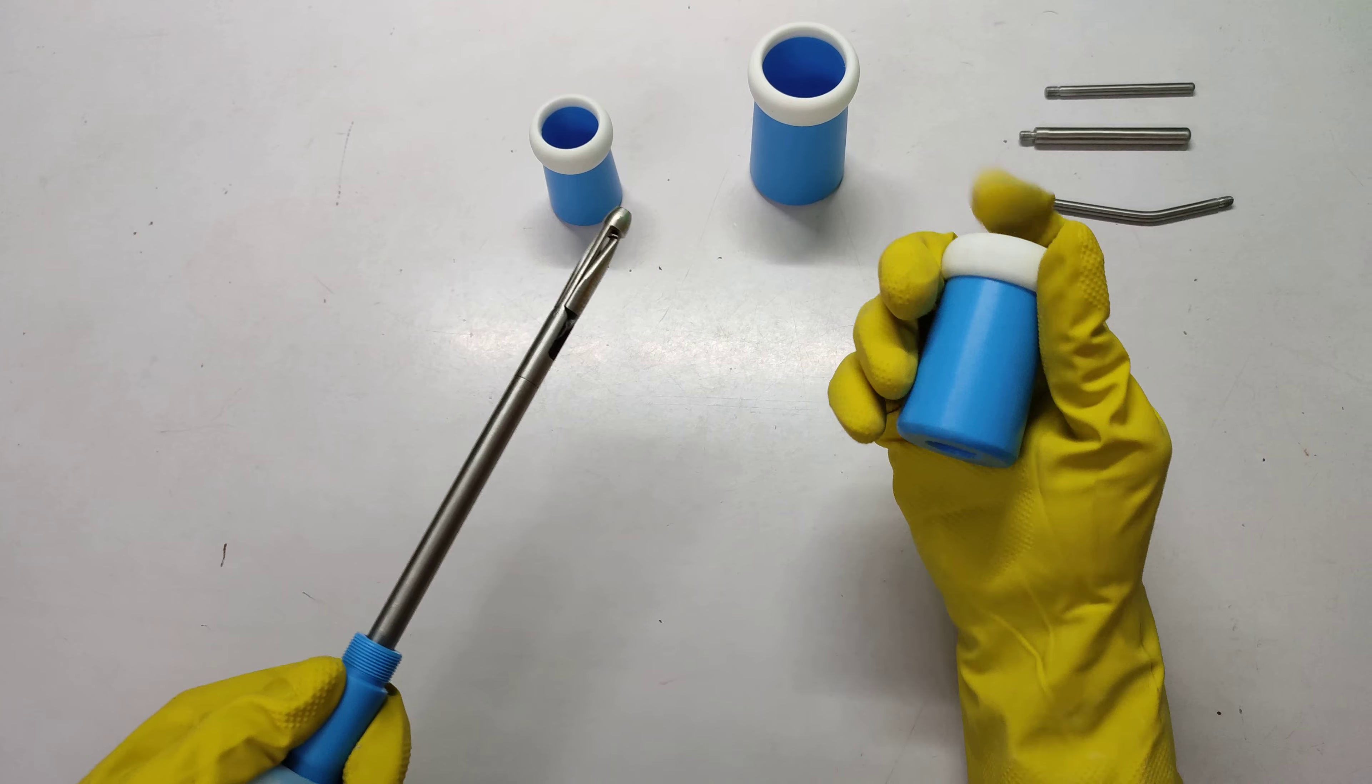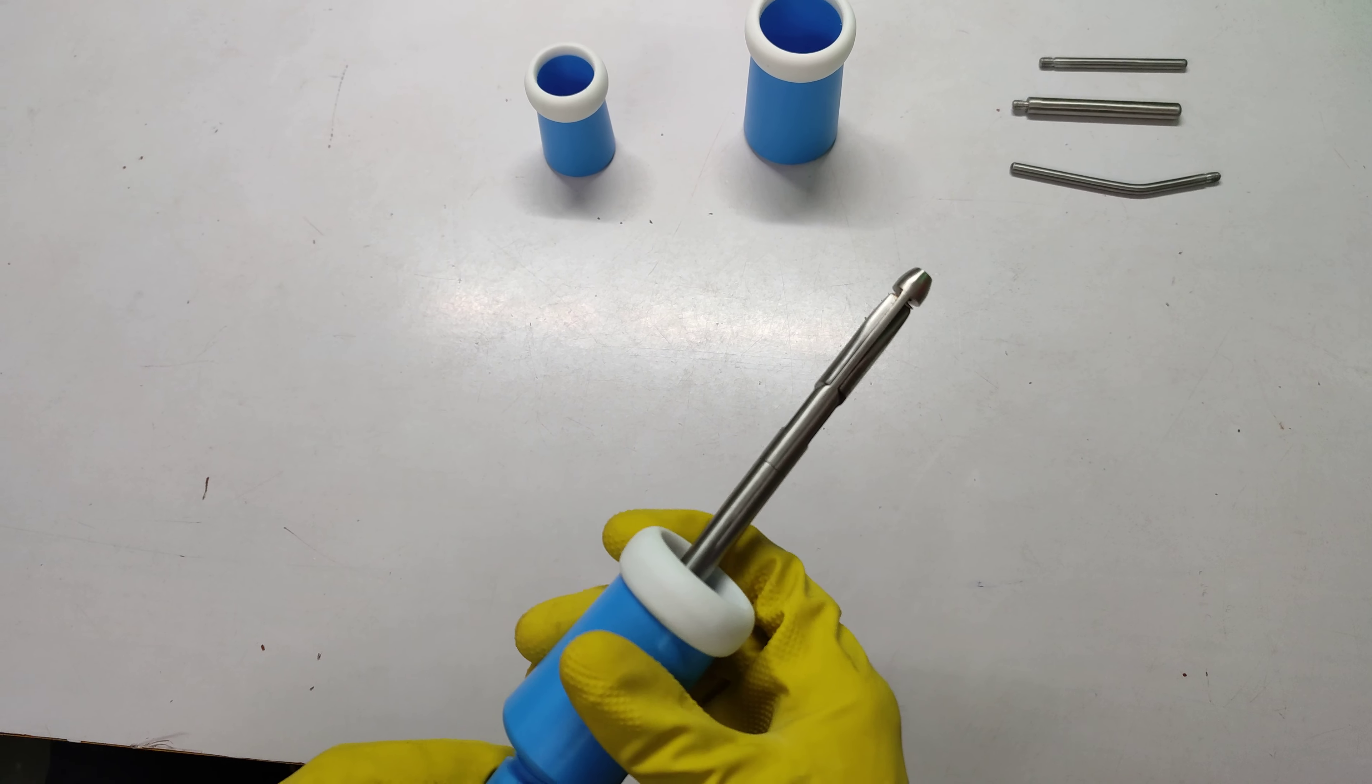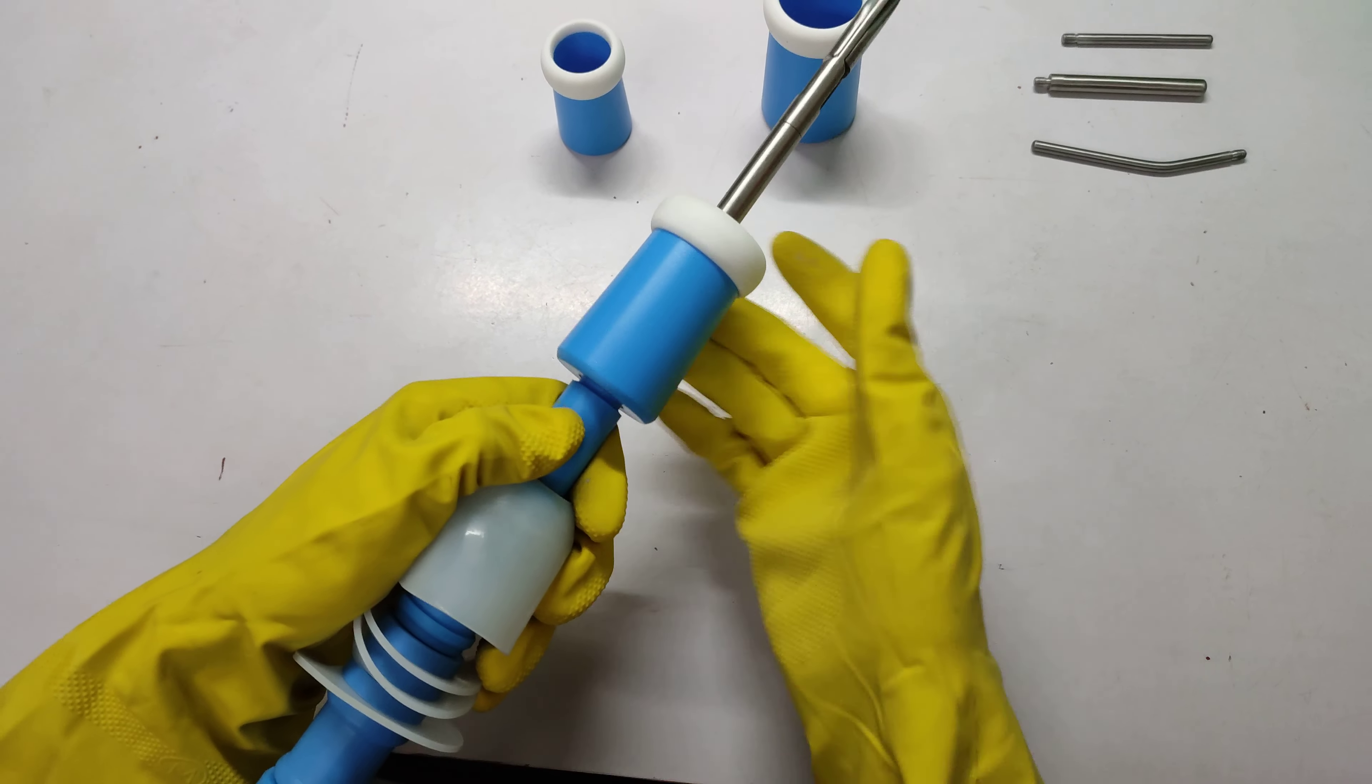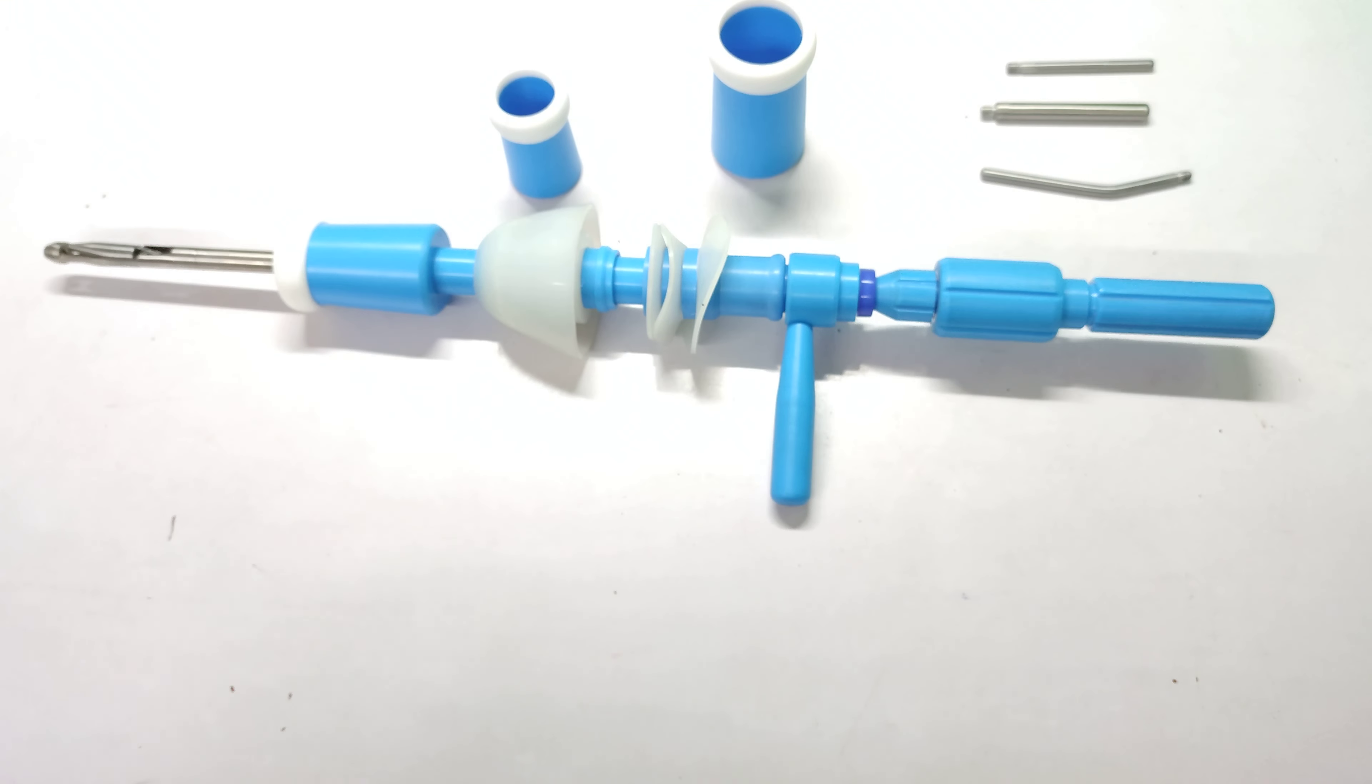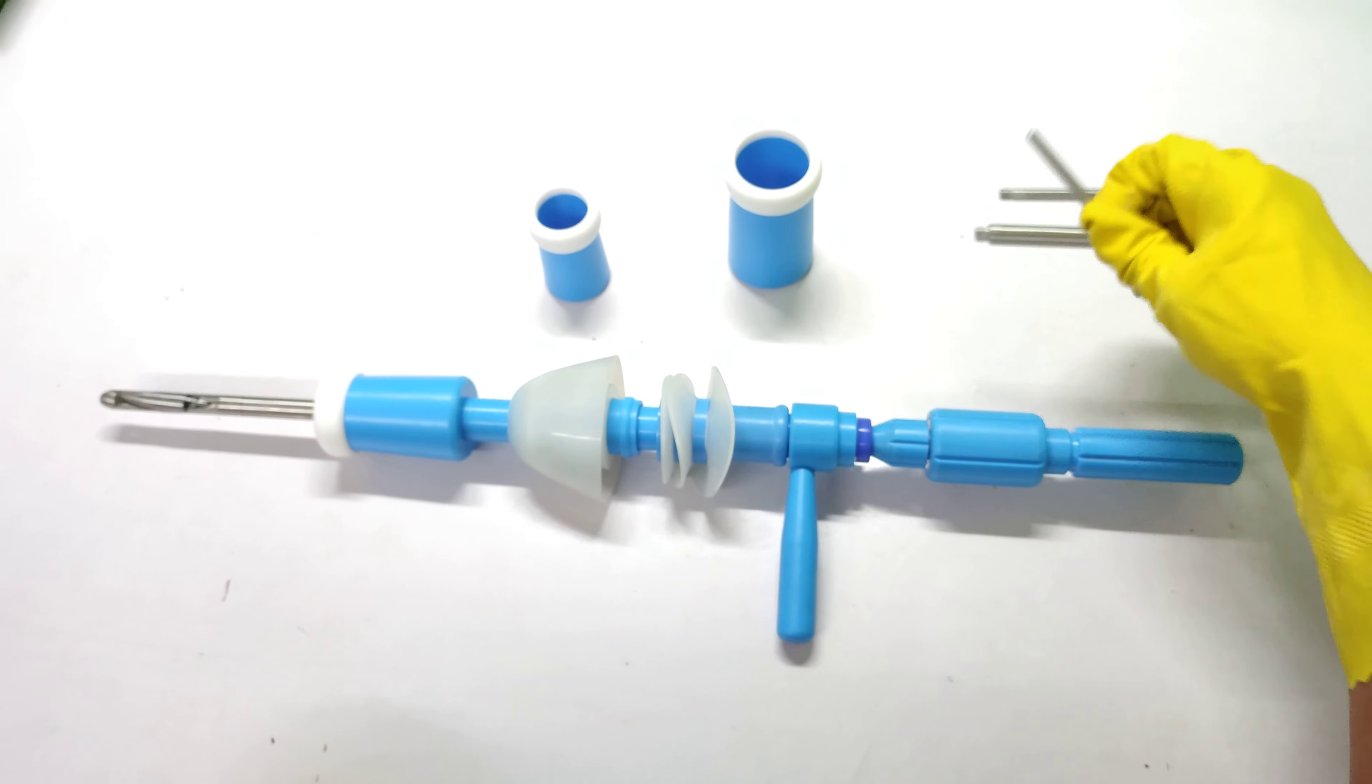I am attaching medium size. Now I am going to show you how to attach these clips.